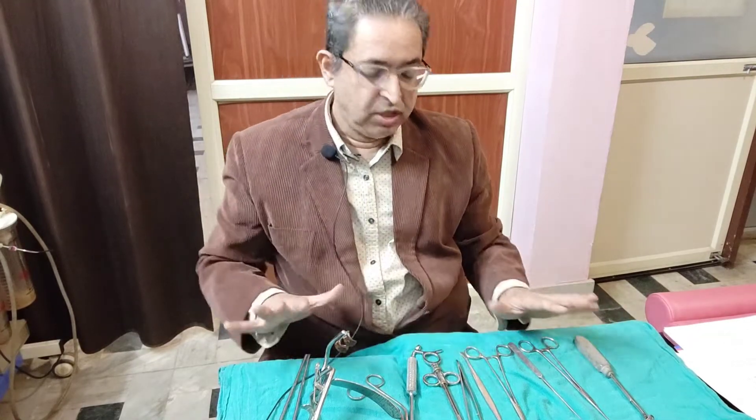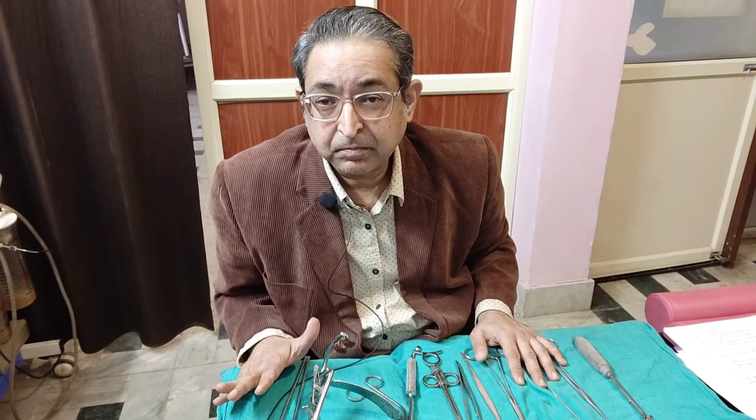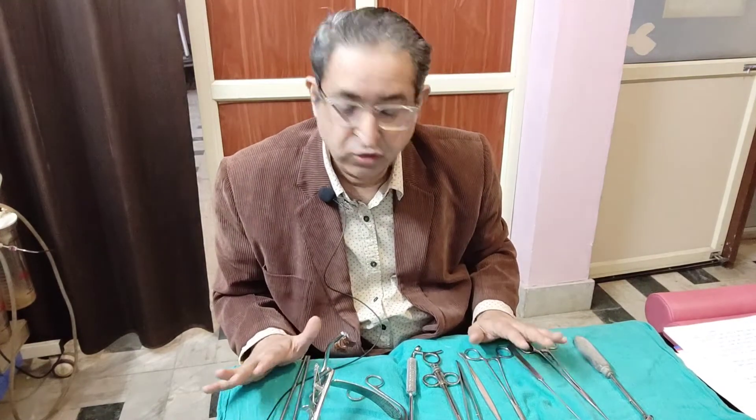That covers tonsillectomy briefly and the list of instruments used in tonsillectomy. Thank you very much.